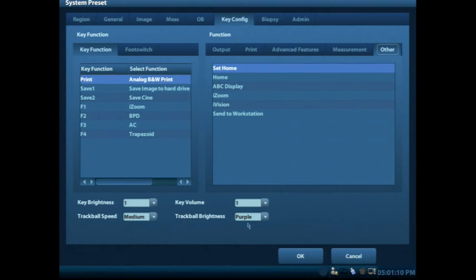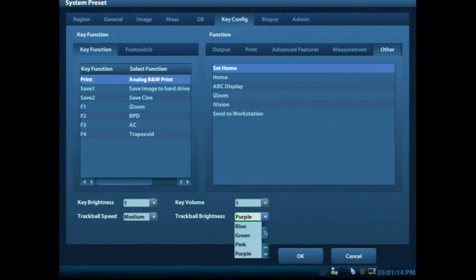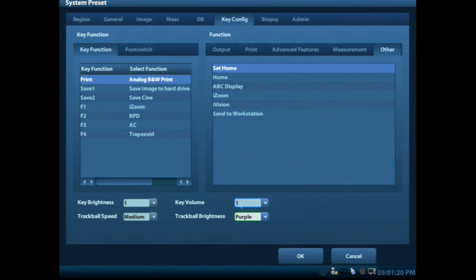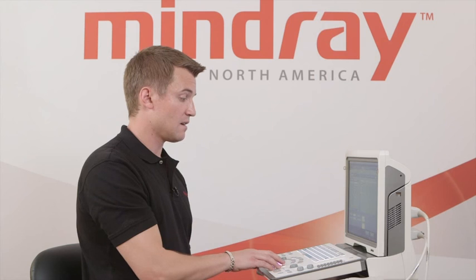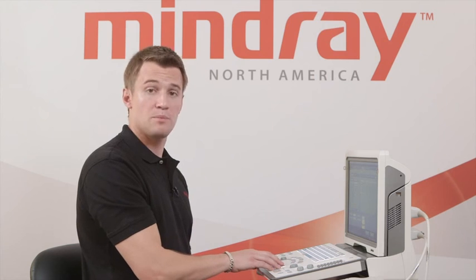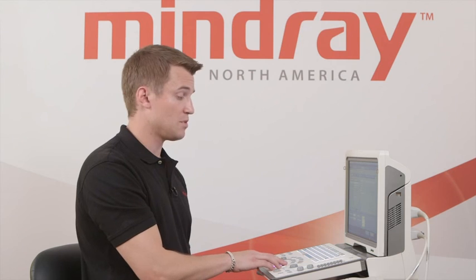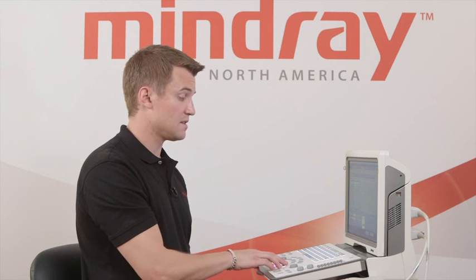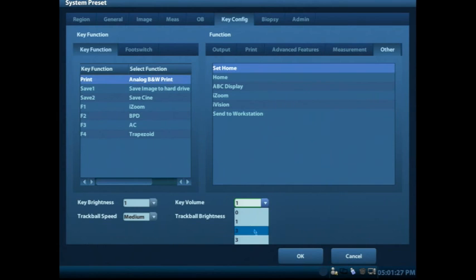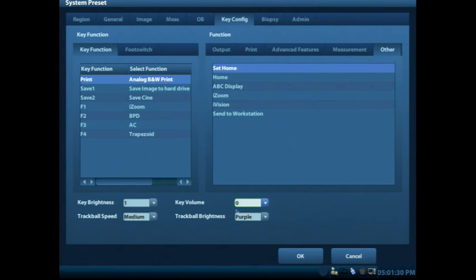Down below, as well, you'll see that the trackball can be different colors, and when you select that you just use the trackball and the set key to pick that. Some places like to have a key volume on there. You can have it either as kind of a loud beep with each time you press one of the keys on a volume 1, 2, or 3, or if you select a volume of 0, that'll have no sound with each keystroke.